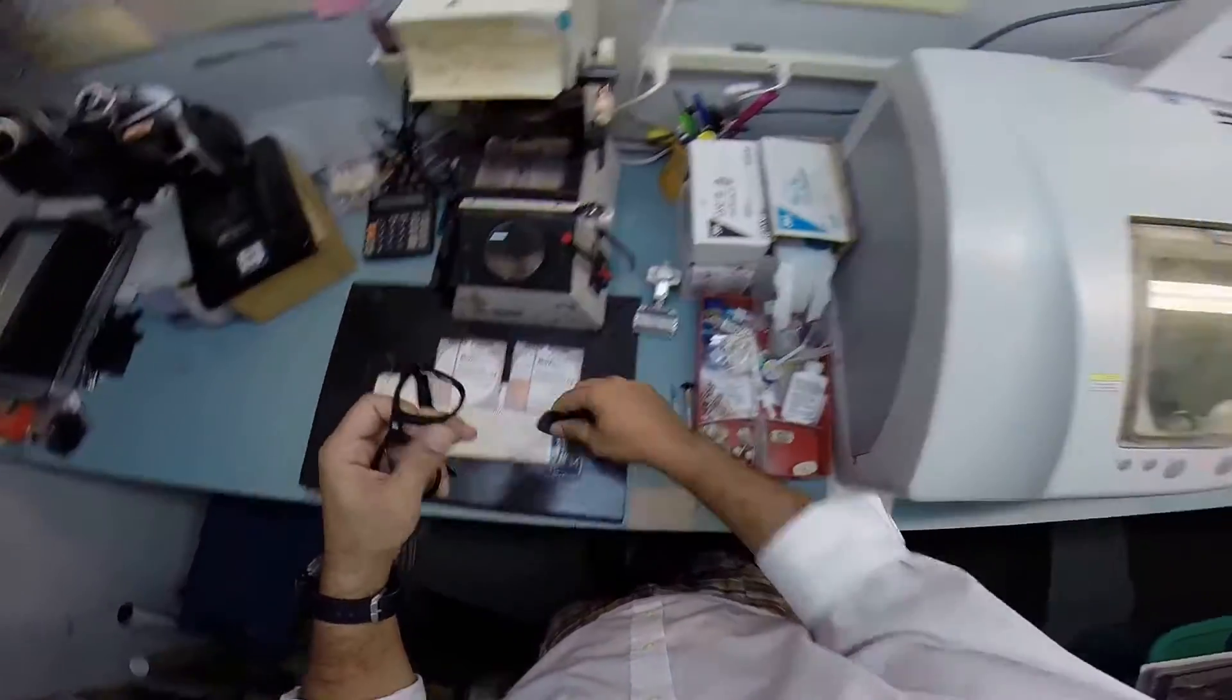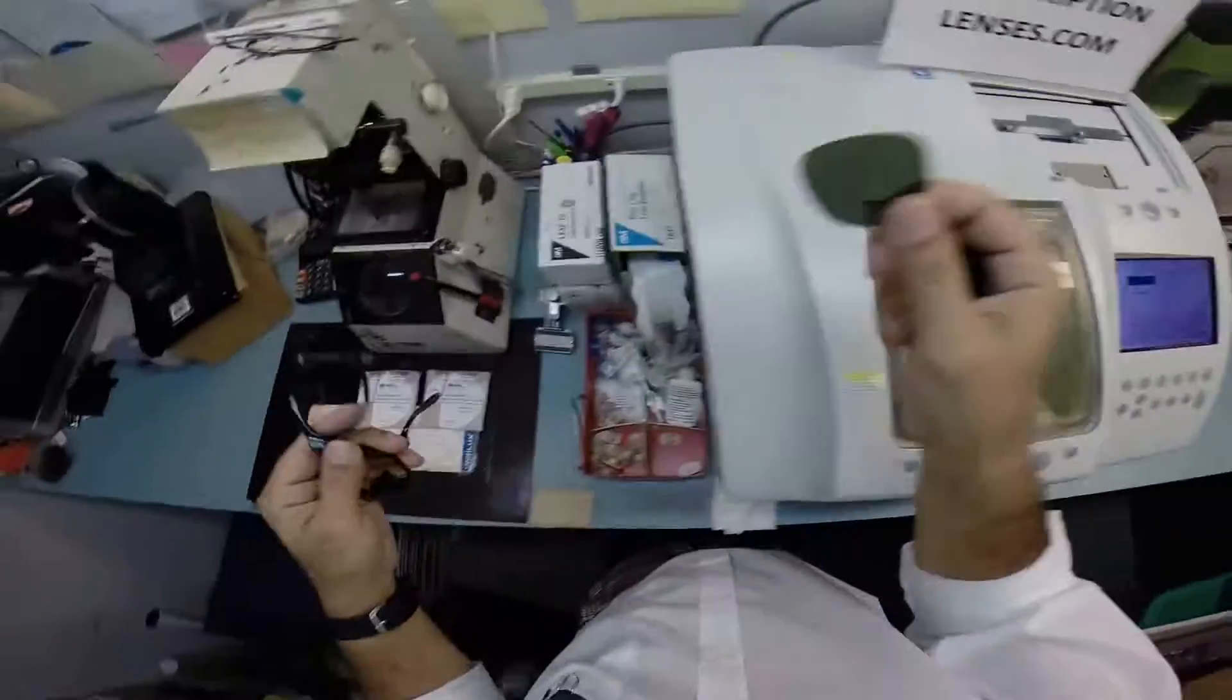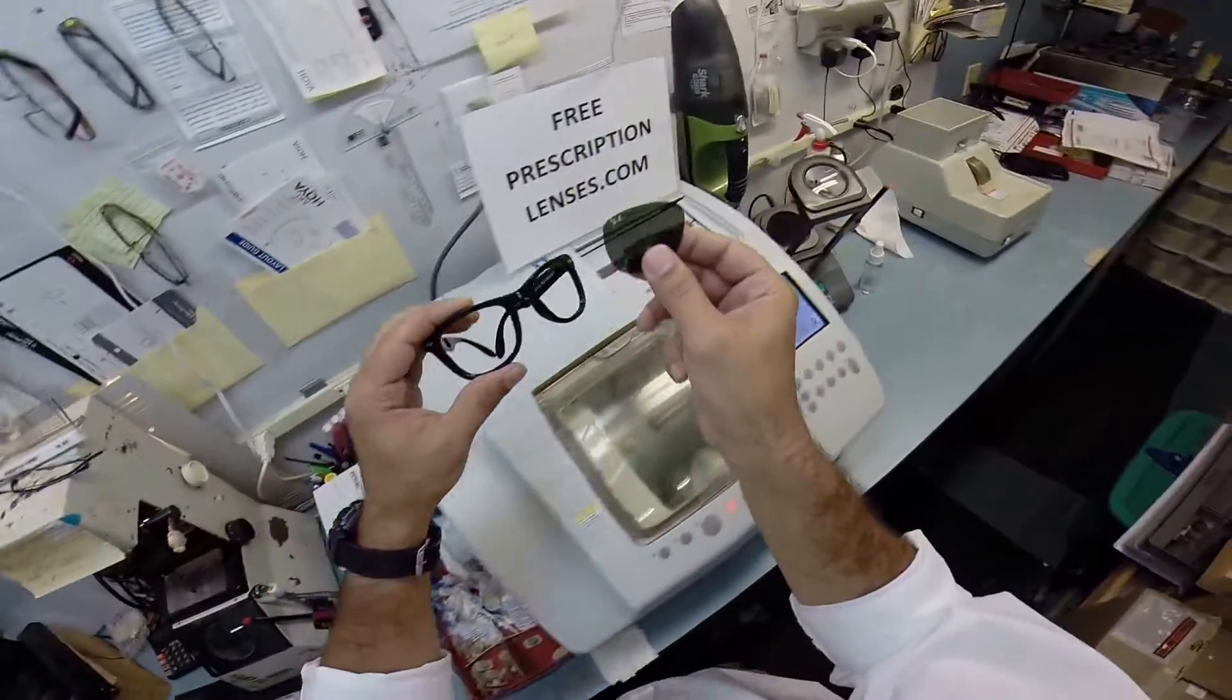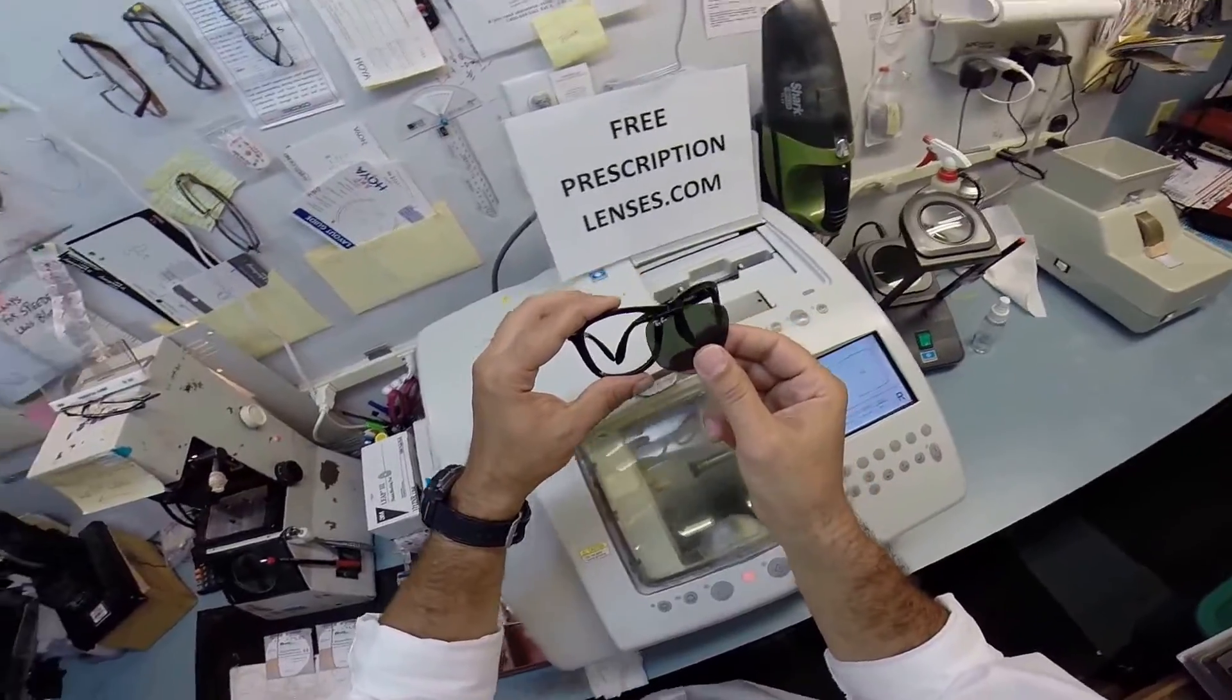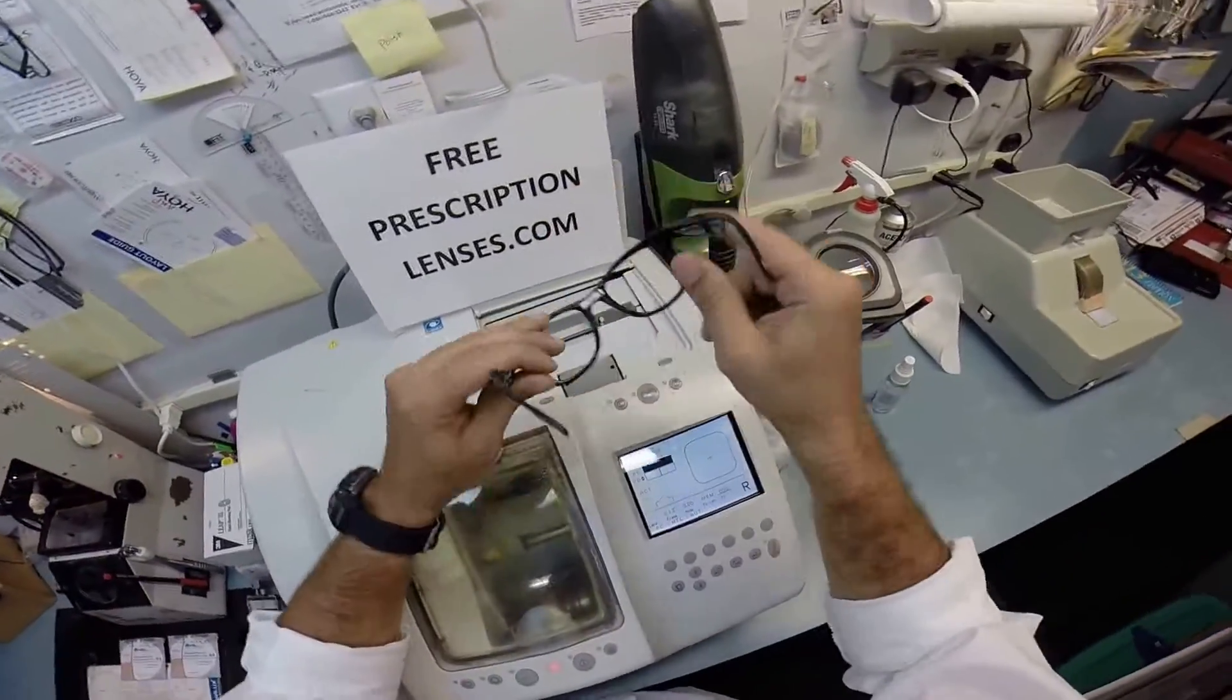I've taken his original dangerous glass lenses out that if he ever gets a pebble to the face or any rock while he's riding could slice open and cut his eye. I'm gonna put in much safer transition lenses.